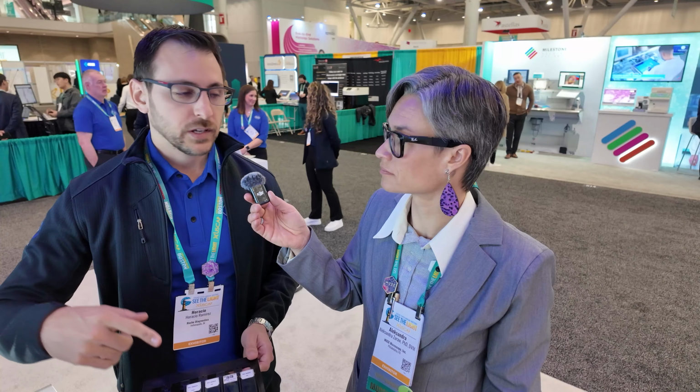And then it will send images to the cloud, and it will build the case with the images corresponding to that specific case in the LIS by itself. Oh, so you have everything together based on the barcoding. Yeah. So that means that potentially it could be zero interactions between the technician and the machine. The only thing they would do is just slide the tray in and walk away. So that's a potential workflow for the system. That's a fully automated workflow, and the pathologists will receive the cases on their instance.